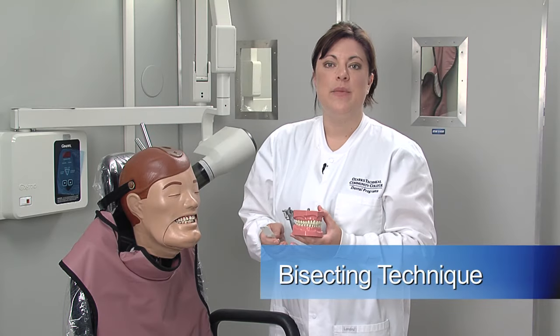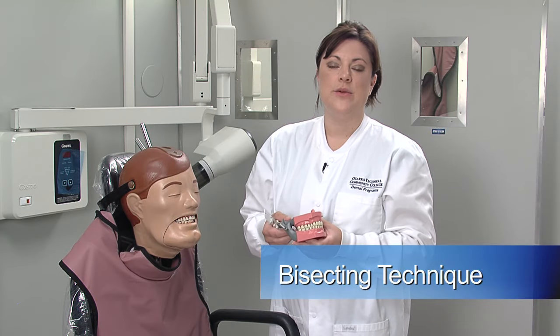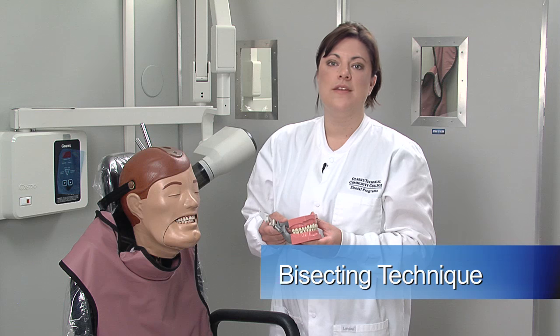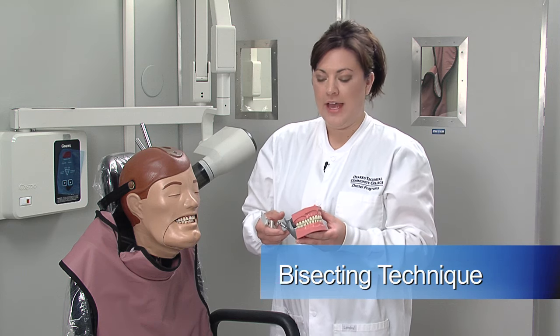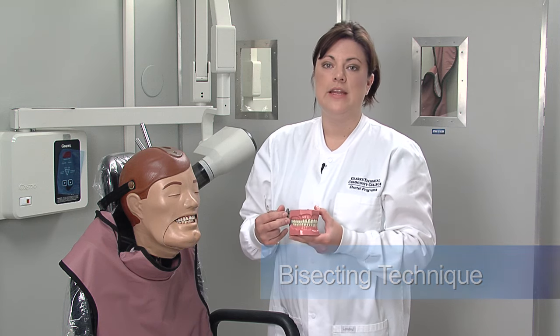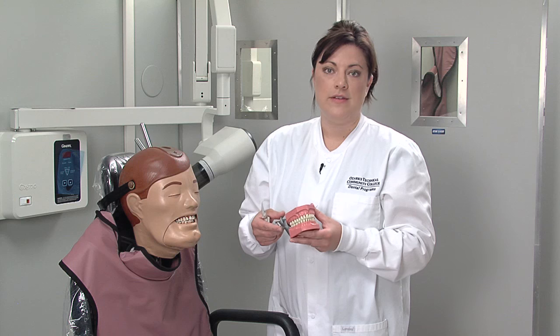We've already discussed the paralleling technique with the full mouth series of radiographs, and now we're going to discuss the bisecting technique. The paralleling technique is the preferred method, but it's not always possible to gain parallelism between the film and the tooth depending on the unique characteristics of each patient.